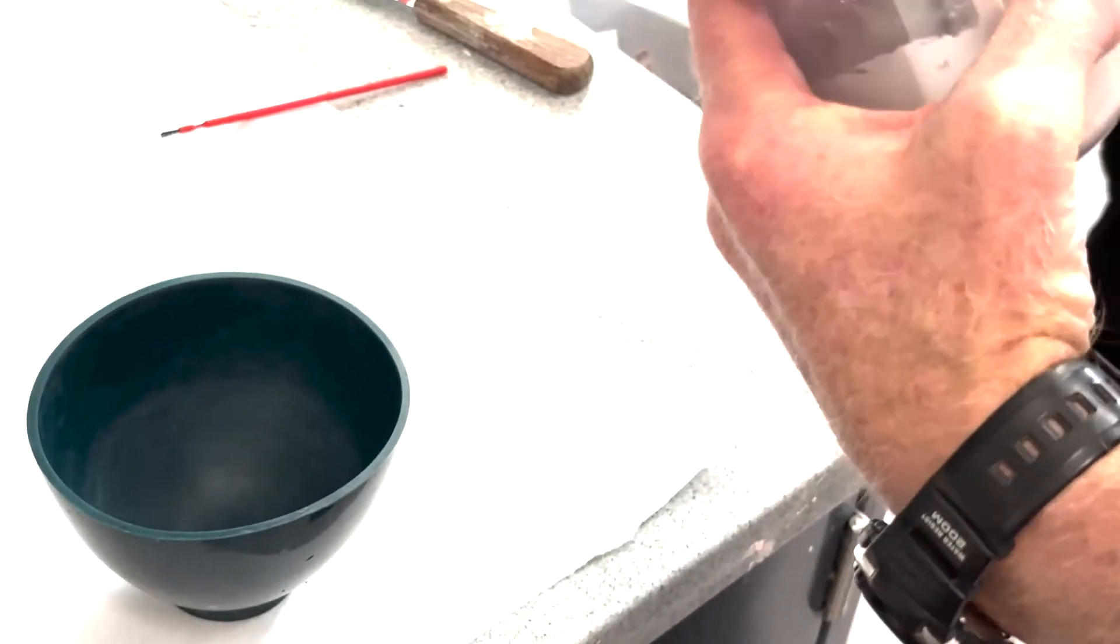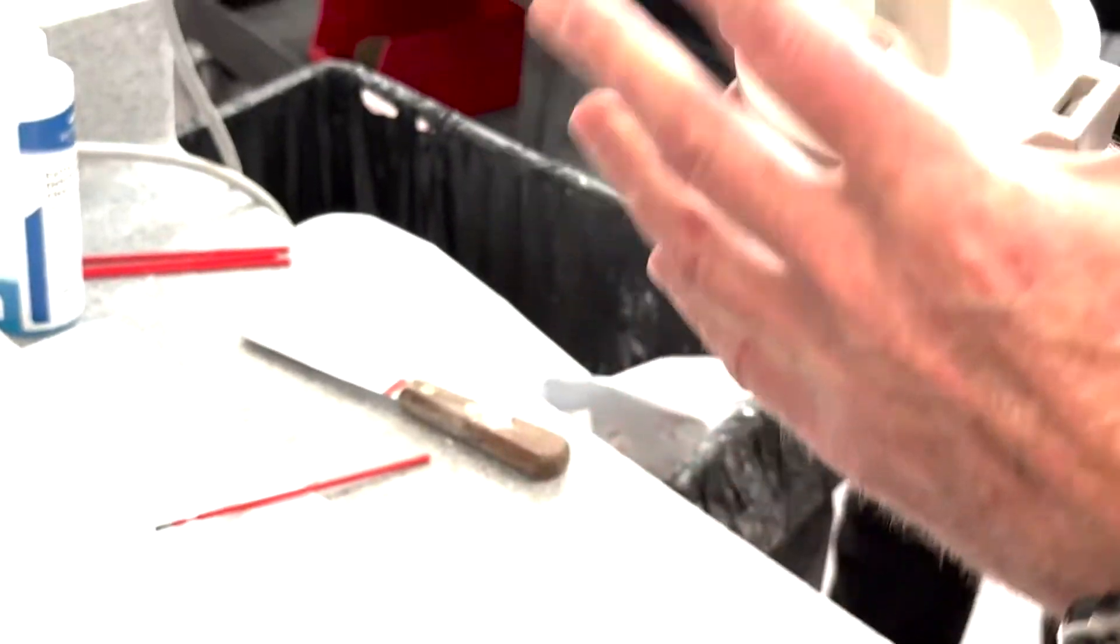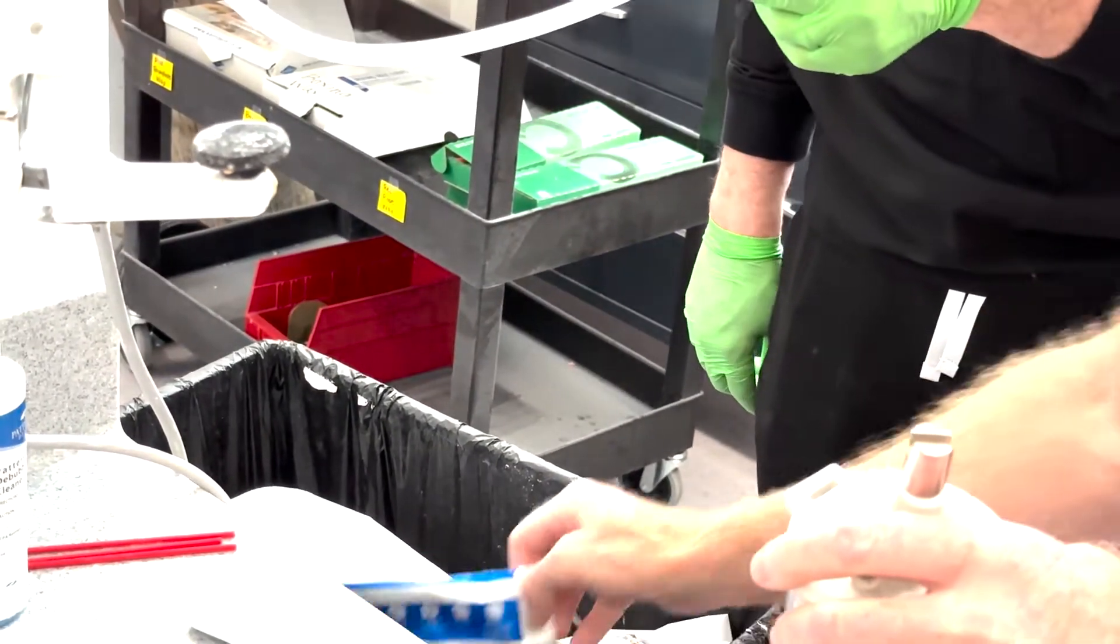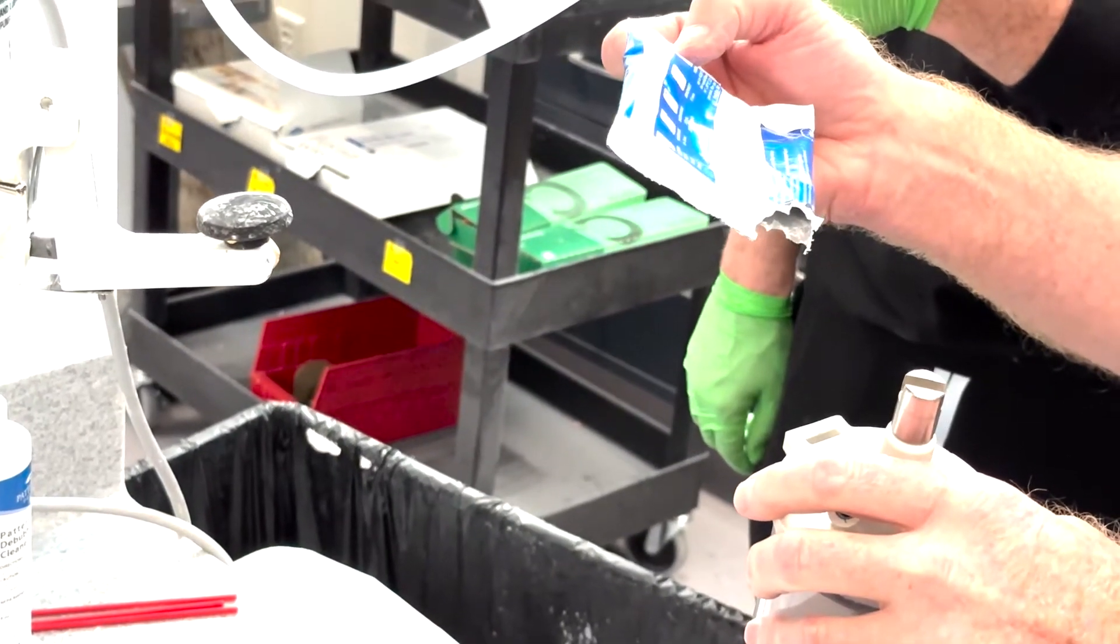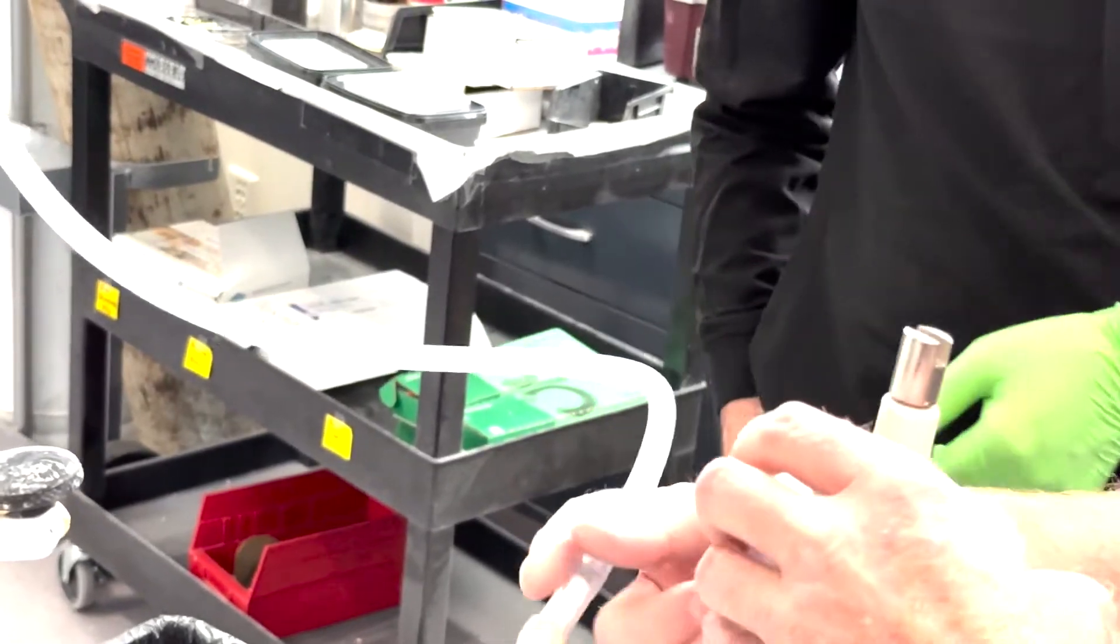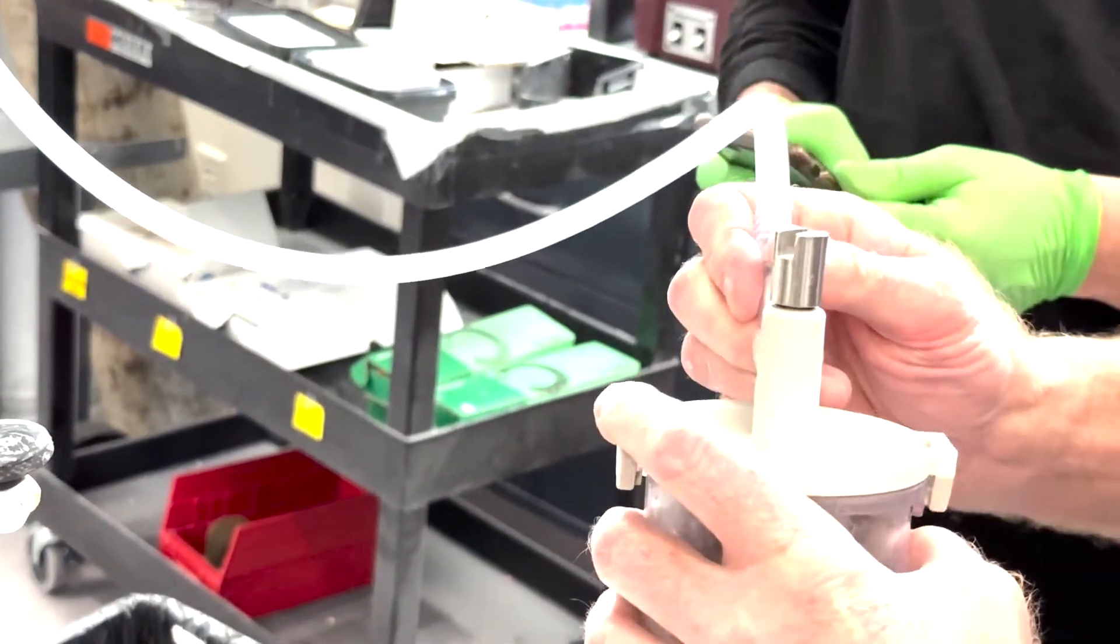And then we'll vacuum mix for one full minute, isn't it? I think it is one minute. What does it say on the package? I think it's either one minute or two minutes. It's a long time. 120, so two full minutes vacuum mixing.